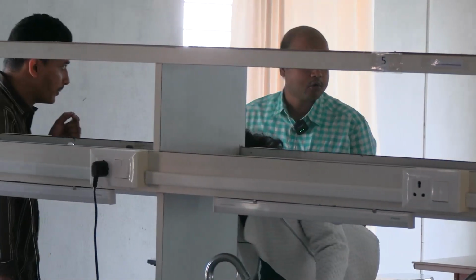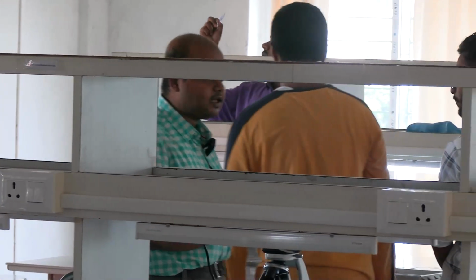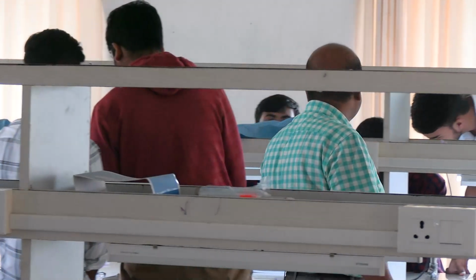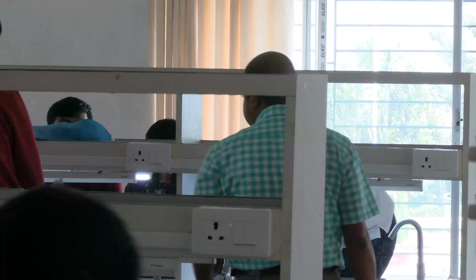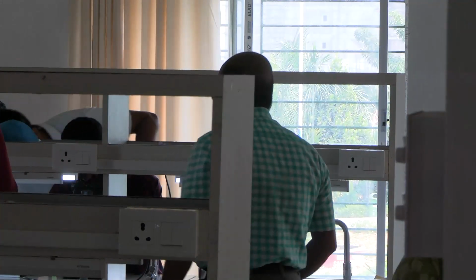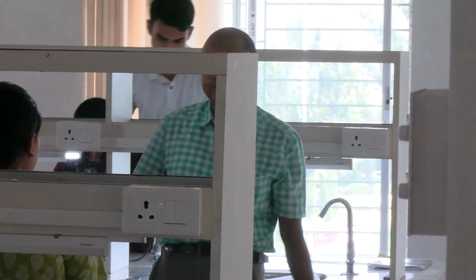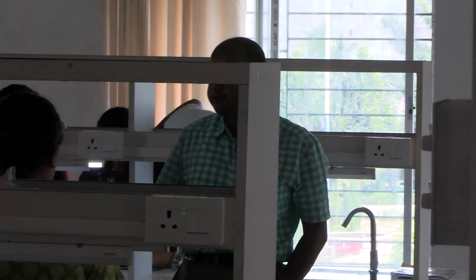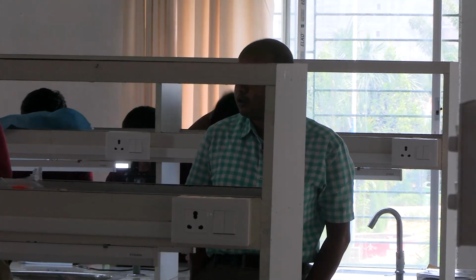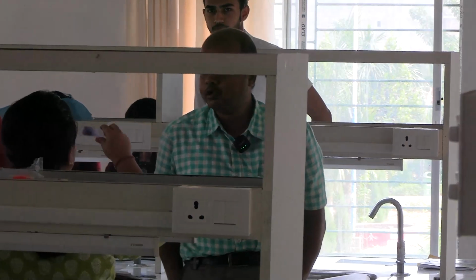Too little blood will not suffice for the experiment, but take the stain according to the blood present in the smear. If you squeeze blood out of your fingers, then most of it is tissue fluid. So pricking is very important. Prick your finger correctly. In the exam, you are on your own. Venous blood may not be supplied, and consider it won't be supplied. You have to do it with your own blood.